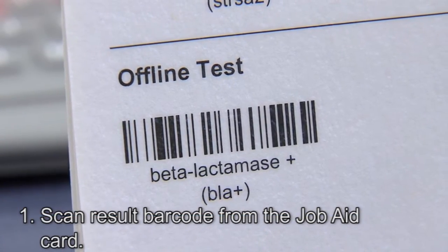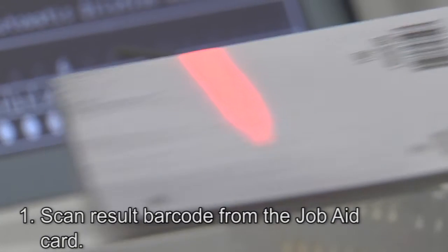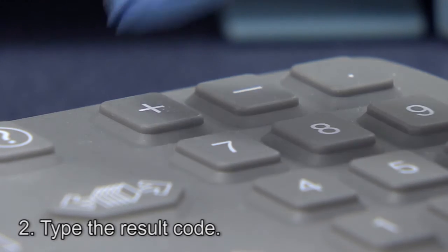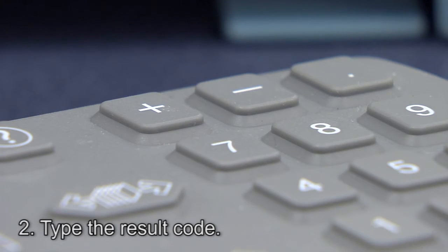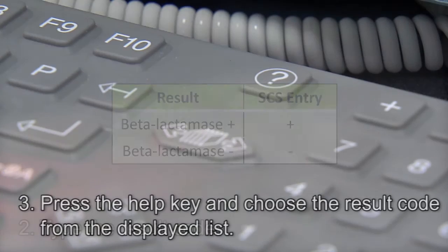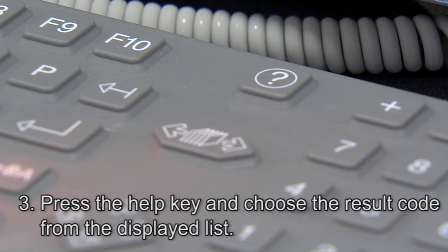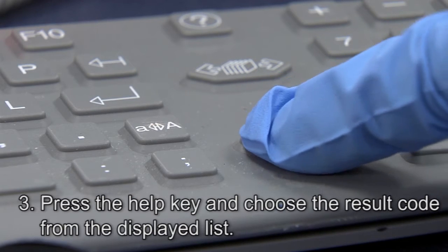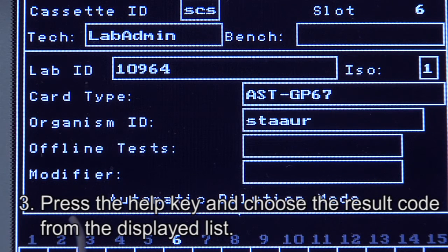First, use the Job Aid card and scan the barcode for the result. Or, second, if the result code is known, it can be typed using the keyboard. Typing a plus sign indicates beta-lactamase positive. Typing a minus sign indicates beta-lactamase negative. The third method to enter the beta-lactamase result is to press the Help key to display a list of result choices. Use the down arrow key to select the result, then press Enter.